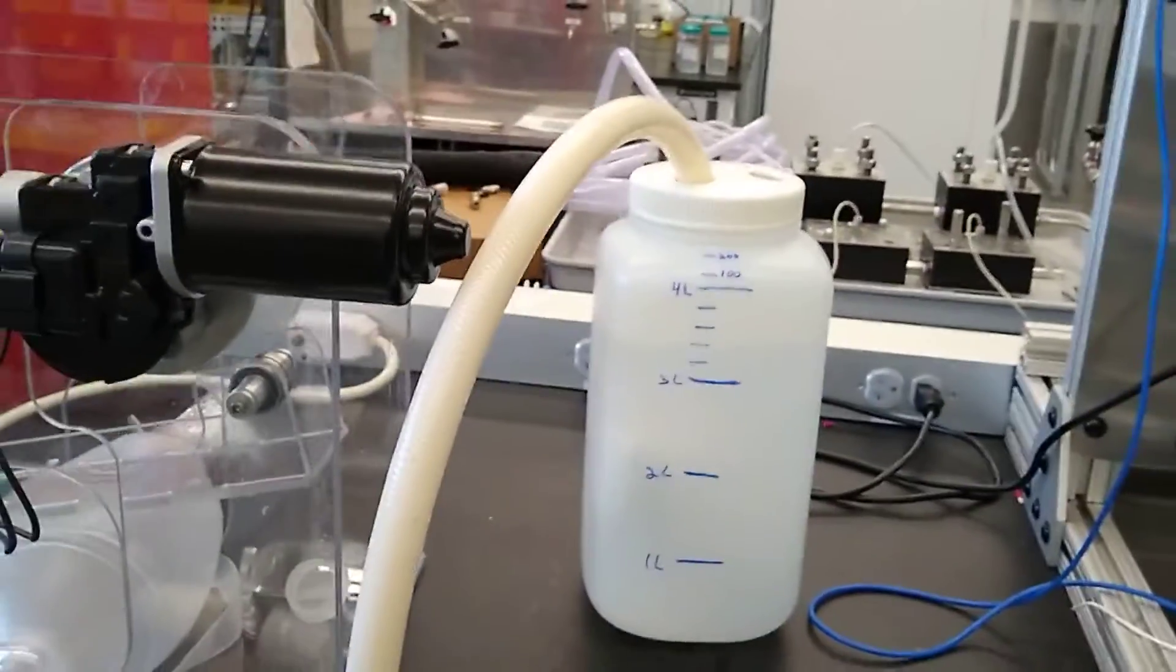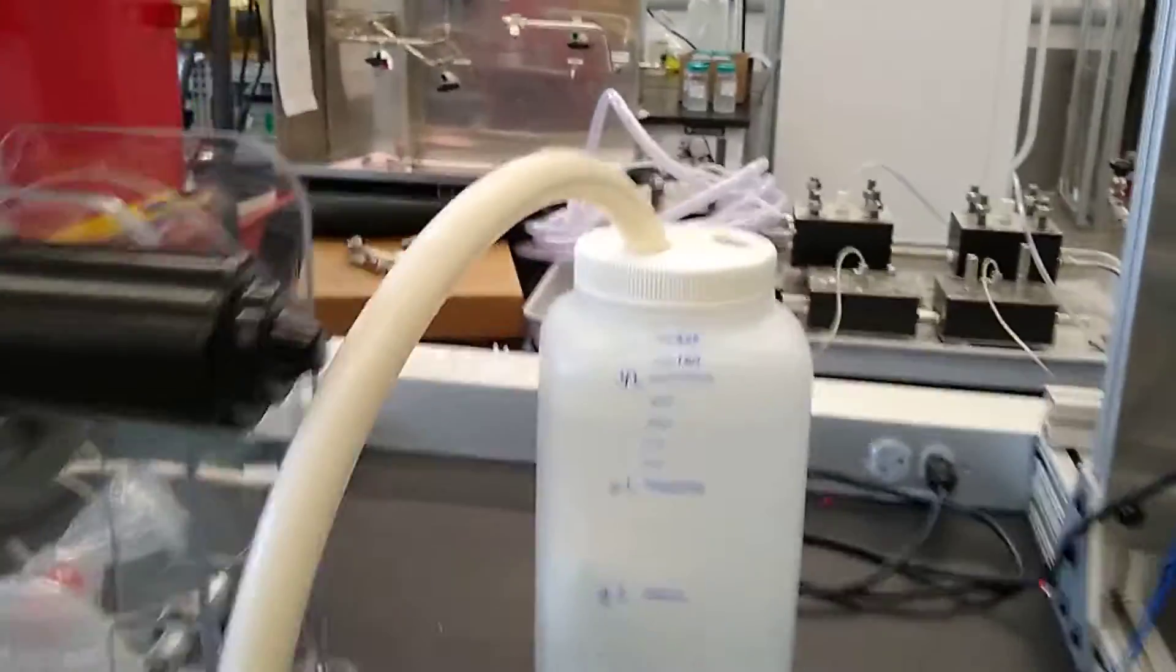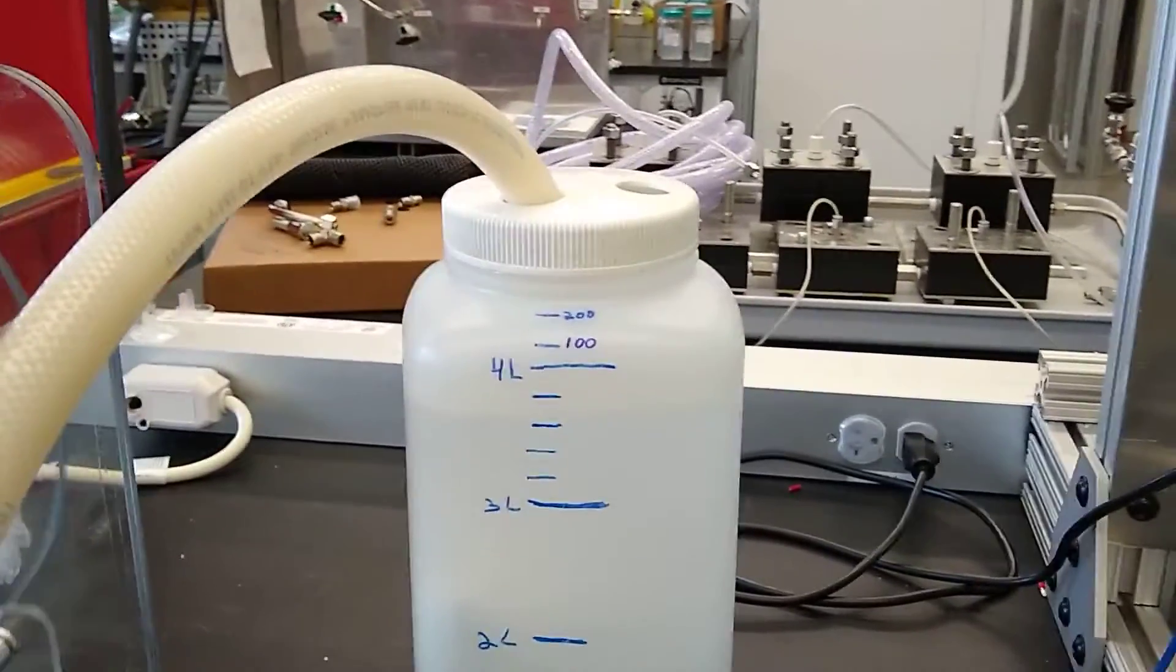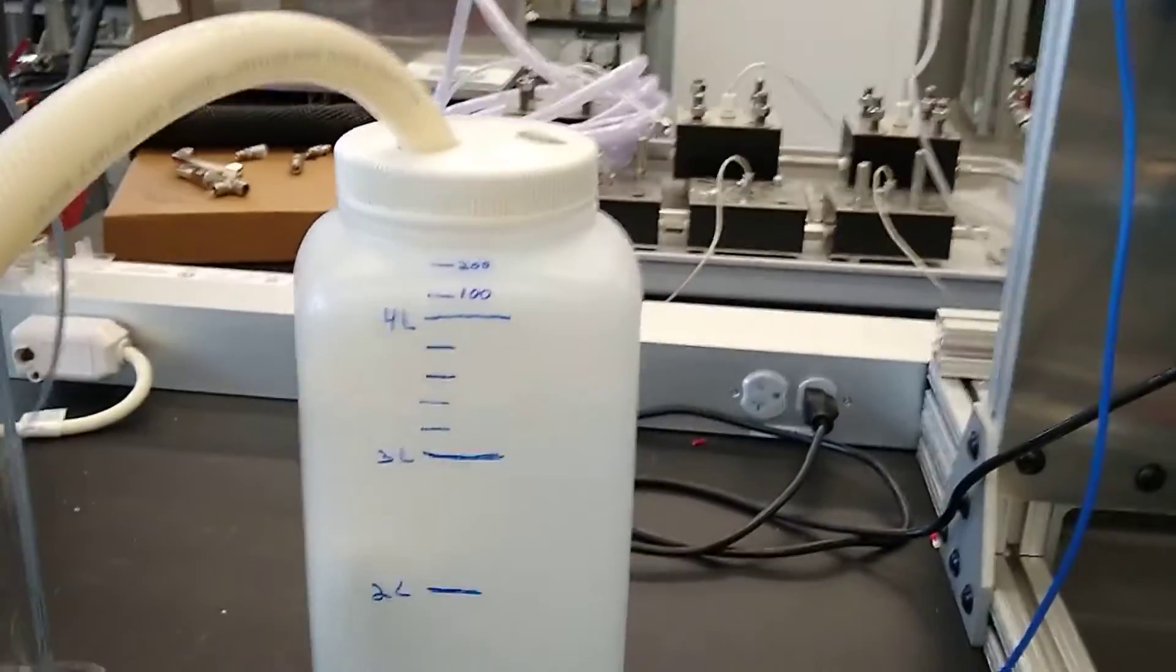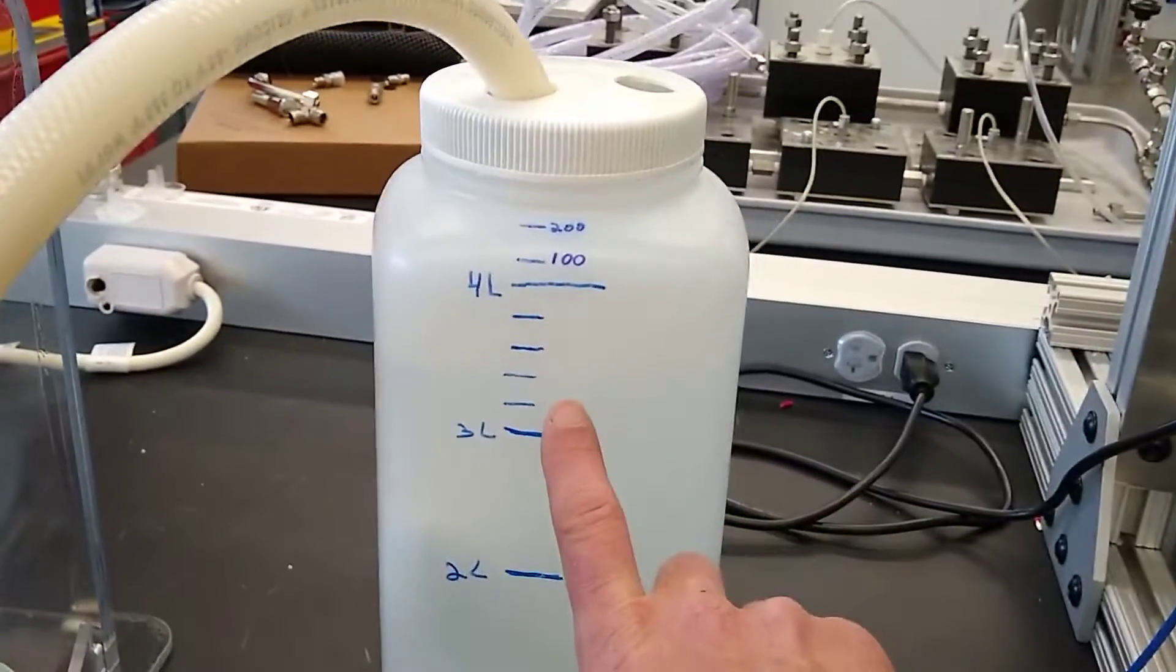One, provide back pressure, simulating a lung so the air is pushed out by the water. What it also does is allow us to see what the tidal volume is.